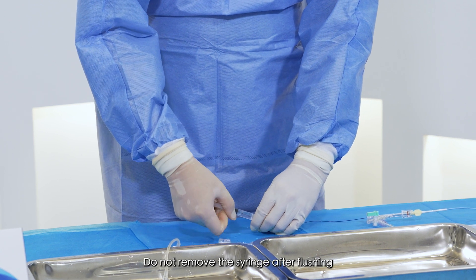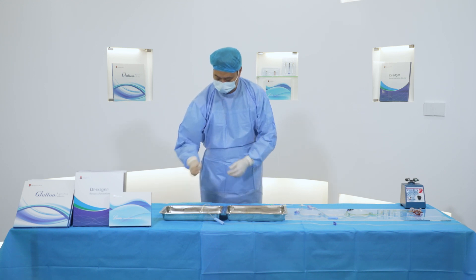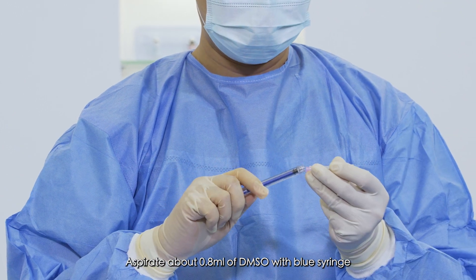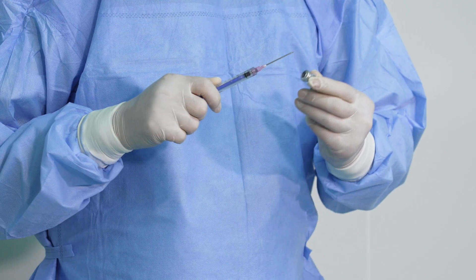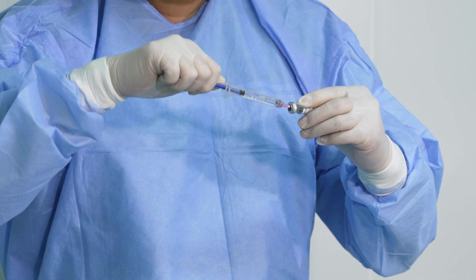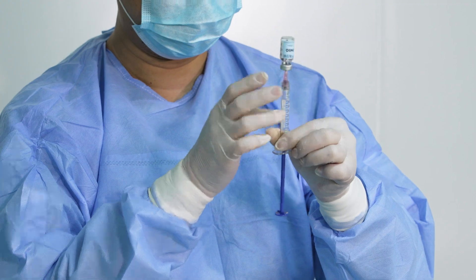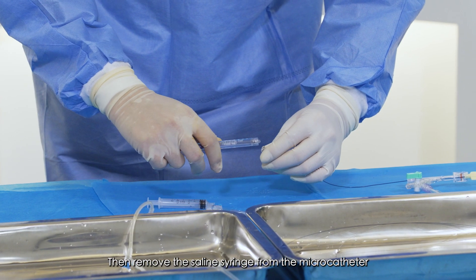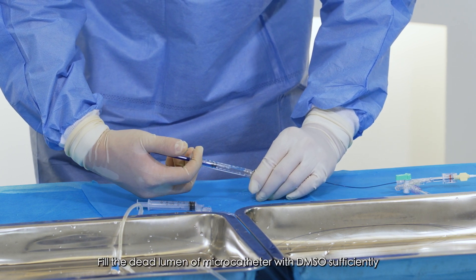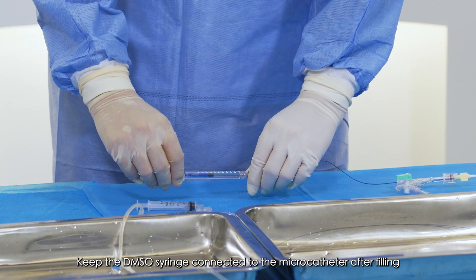Do not remove the syringe after flushing. Aspirate about 0.8 mL of DMSO with the blue syringe. Then remove the saline syringe from the microcatheter and connect the DMSO syringe to the microcatheter. Fill the dead lumen of the microcatheter with DMSO sufficiently, and keep the DMSO syringe connected to the microcatheter after filling.